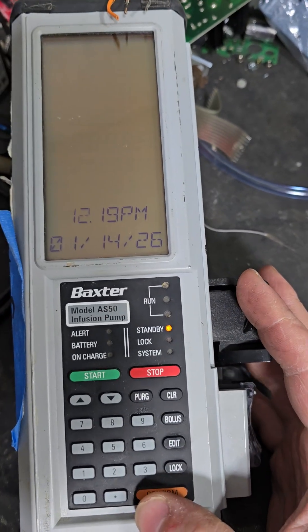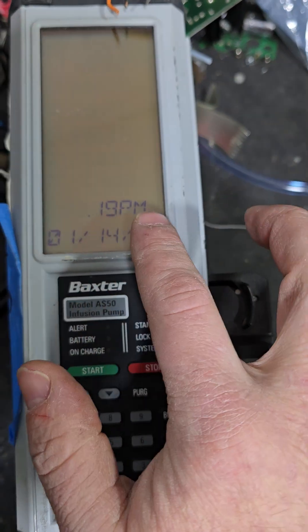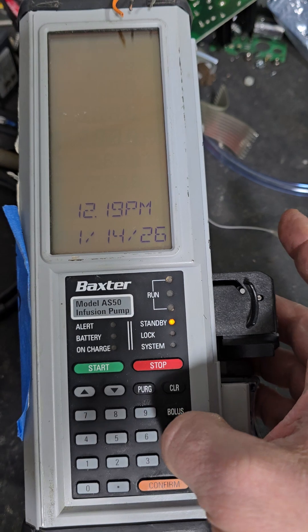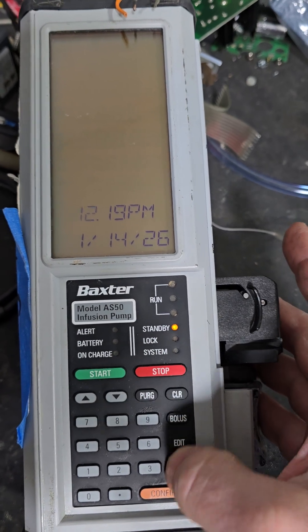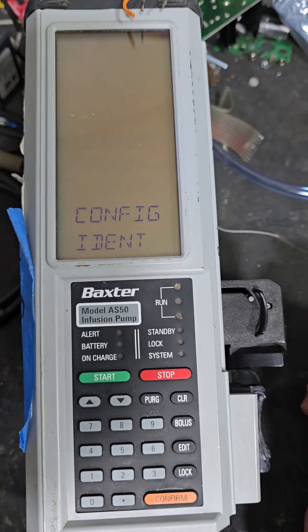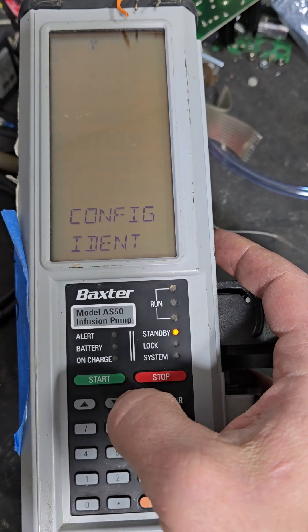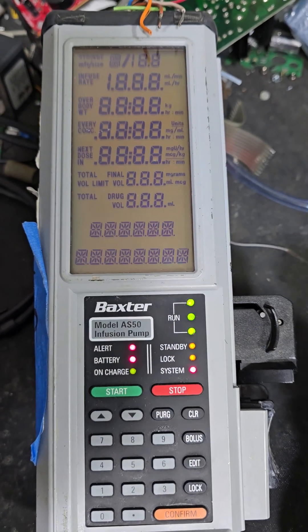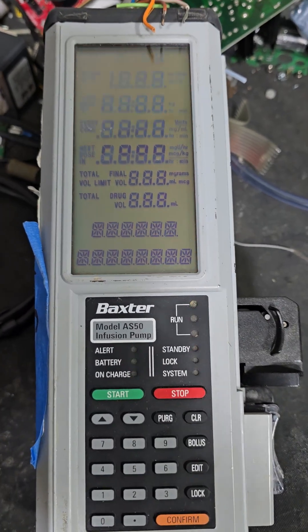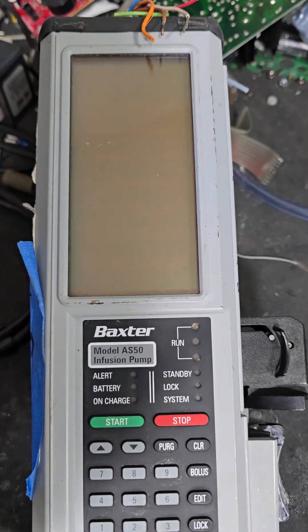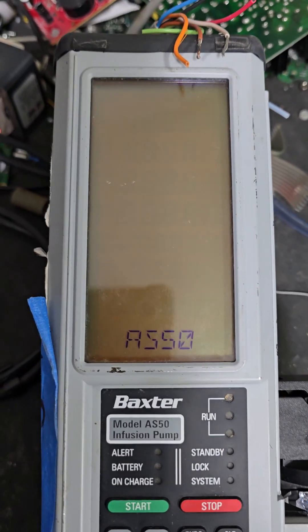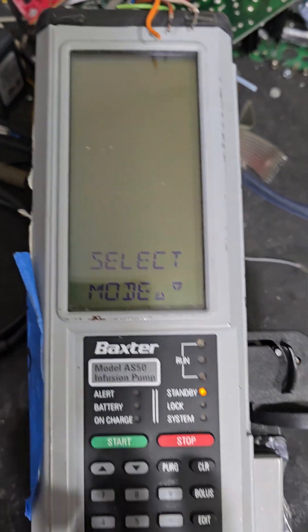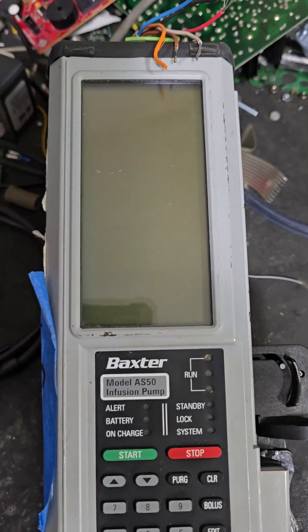Once you're in, there it is. To advance to the next window, hit edit — it goes to the next box, see? Confirm when you're finished. I don't want to change identity. Confirm when you're finished and then we'll go back to our home screen. And there you are — that's done.